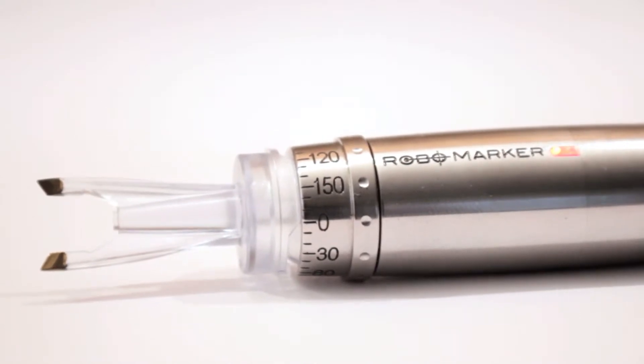A for accuracy because of B bearings, high precision ball bearings, not one but two coupled with two hidden pendular weights.